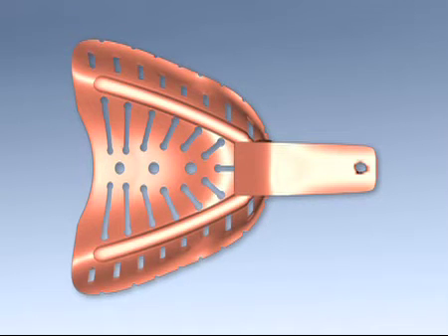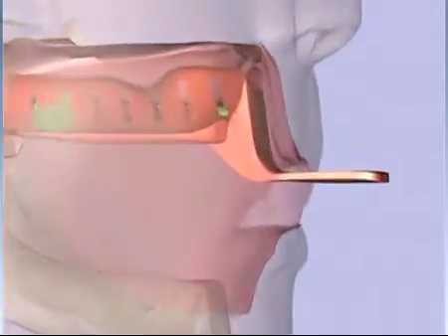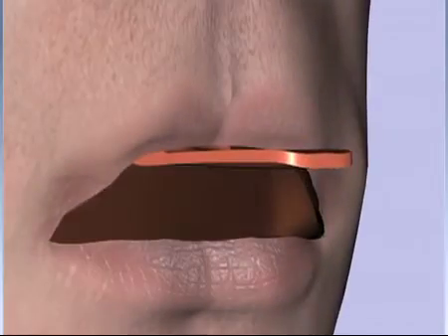And finally, the handle is built for the proper lip length, facilitating a smooth impression.